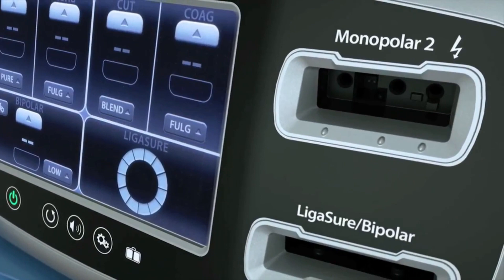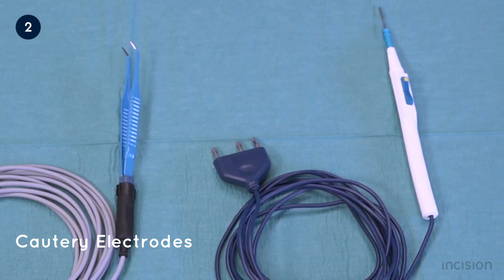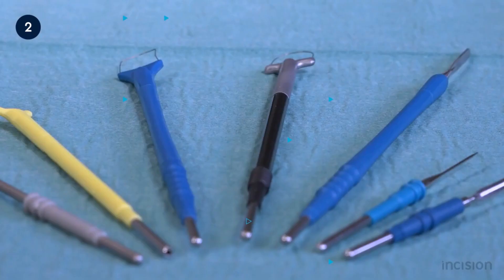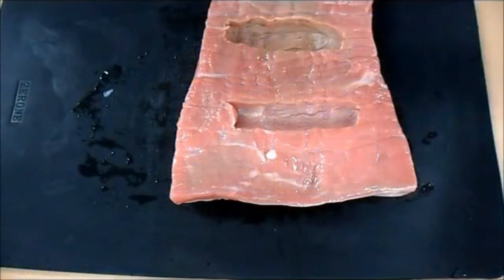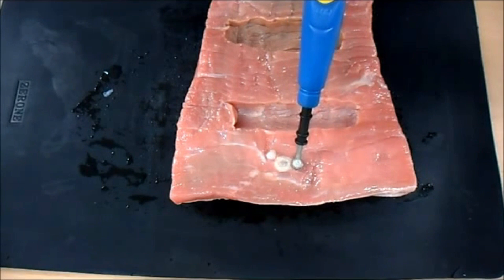Cautery electrodes are available in different shapes and sizes depending on the surgeon's requirement. Electrosurgical pencils can be operated either by hand or foot, are reusable, and also come in disposable variants. ESU pencils give surgeons the ability to control cutting and coagulation settings by buttons or switches. The types of electrodes are: blade electrode, needle electrode, ball tip electrode, blunt electrode, and precision electrode.